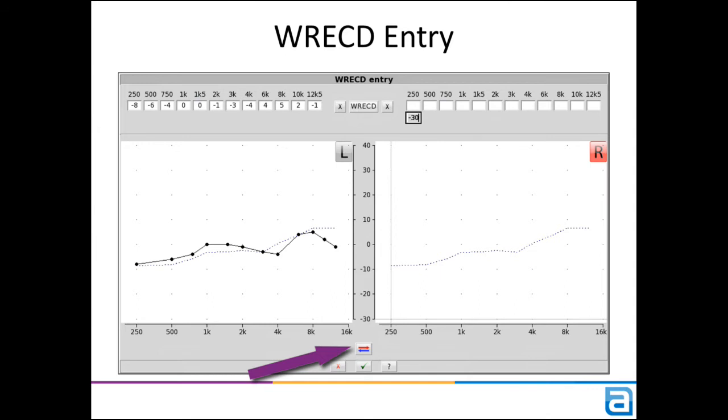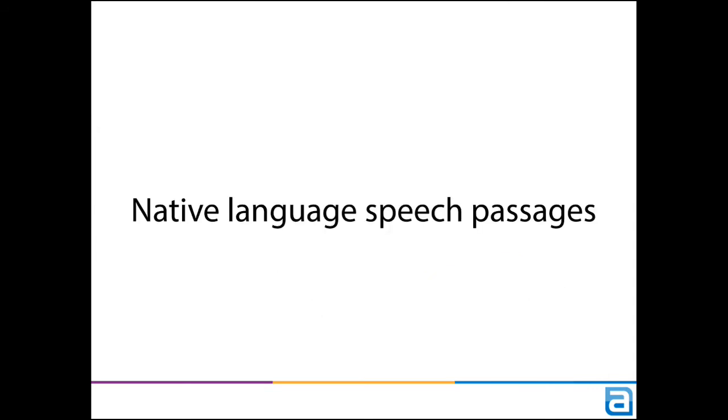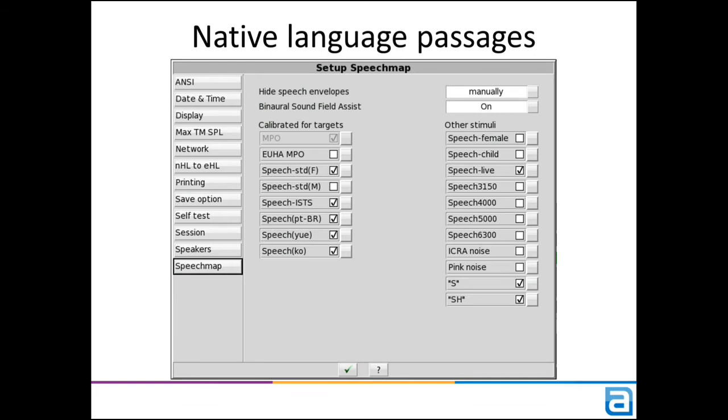We're continuing to add calibrated native language speech passages. Last release, it was Cantonese and Brazilian Portuguese. For this release, we've added Korean. In the spring release, we'll be adding Mandarin as well.